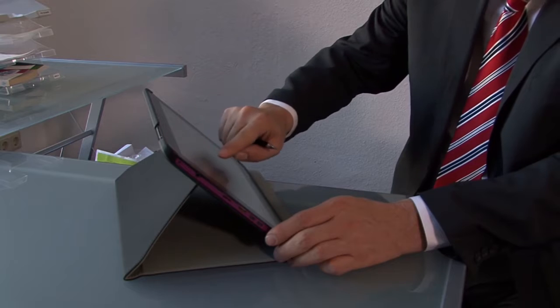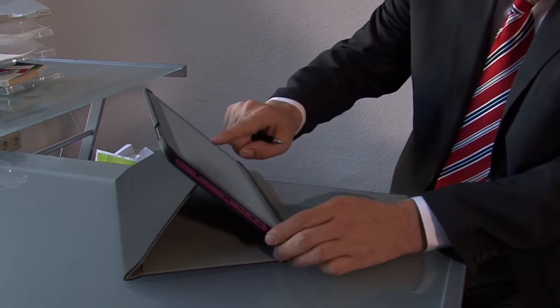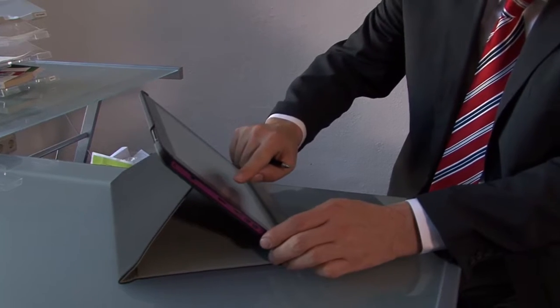Medical display requirements are different from country to country, but they are very similar. Typical requirements are that you need a homogeneous visualization. Consumer displays come with a deviation of more than 50%, but medical displays need to be homogeneous.